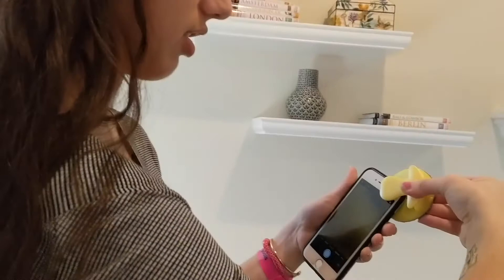This is my iPhone 7 here, and here's our photokeratoscope. So I'm going to start by turning on my phone and opening up my camera app. I just opened up my camera. What I'm going to do now is pinch this, so I can open up the clip, as you can see here.